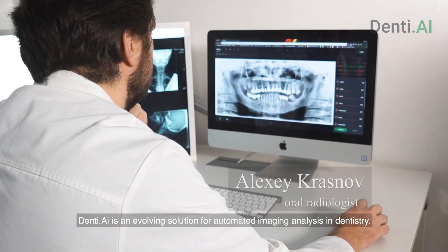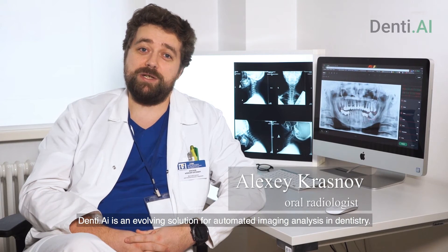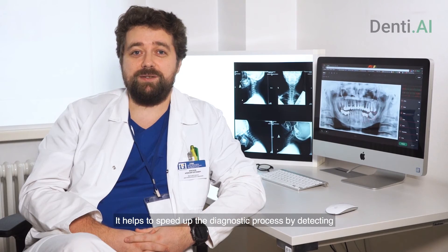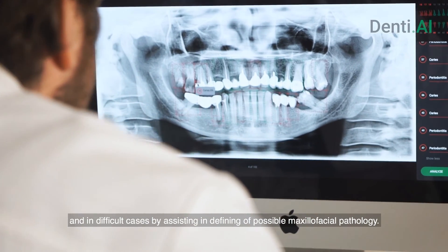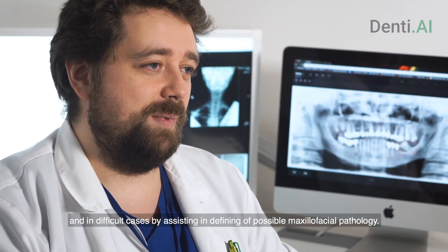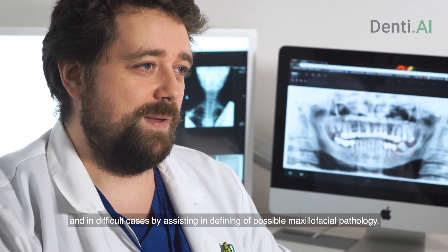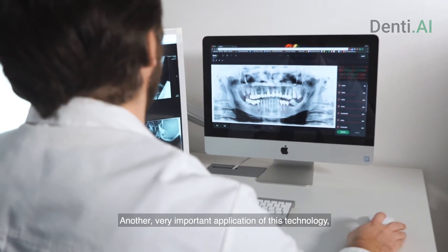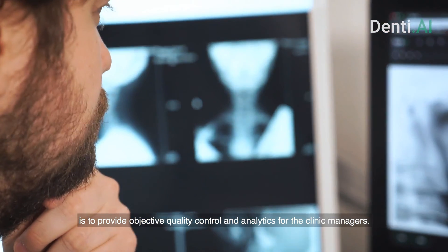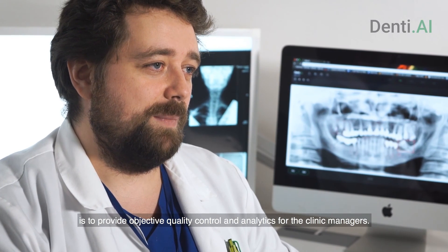Denti AI is an evolving solution for automated imaging analysis in dentistry. It helps to speed up the diagnostic process by detecting and, in difficult cases, by assisting in defining possible maxillofacial pathology. Another very important application of this technology is to provide objective quality control and analytics for clinic managers. Try our service at www.denti.ai.